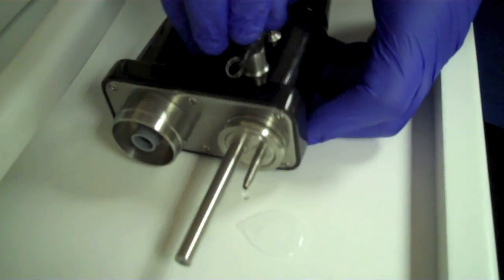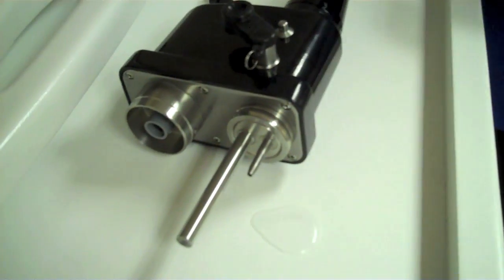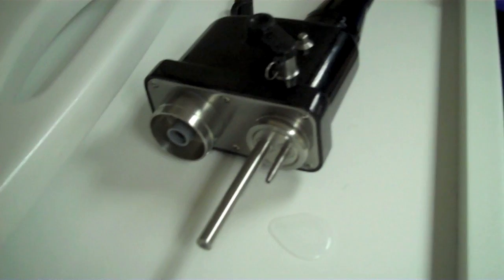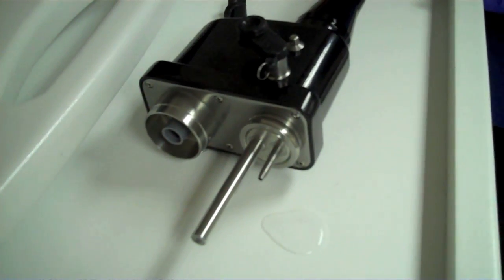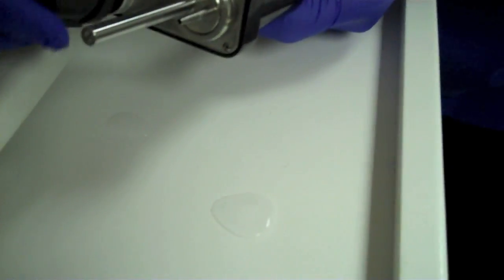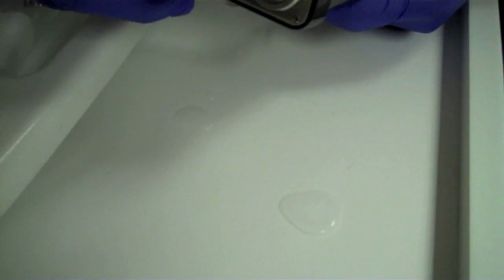It's important for this to go on to allow us to pump the solutions through in a minute. We'll also put on the airtight valve over the electronics just in case there's any dribbles out the air water.